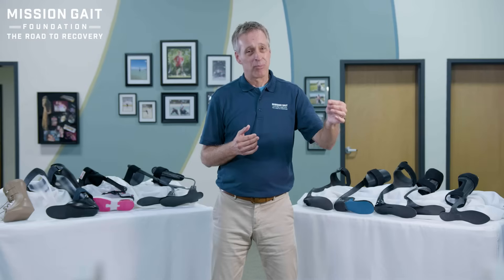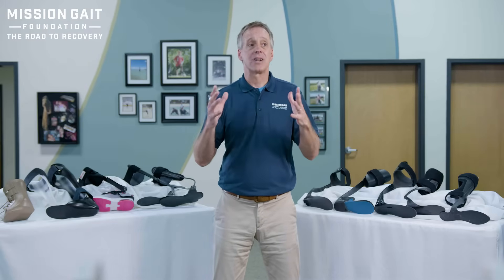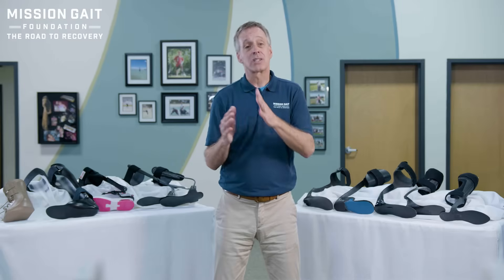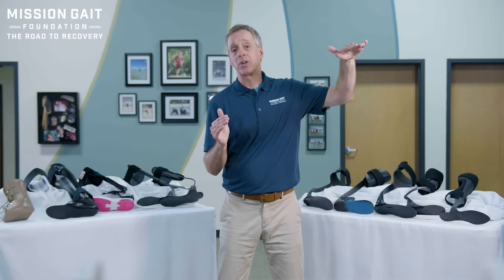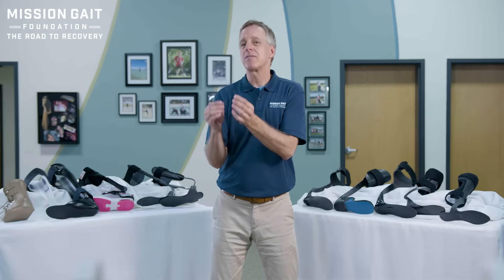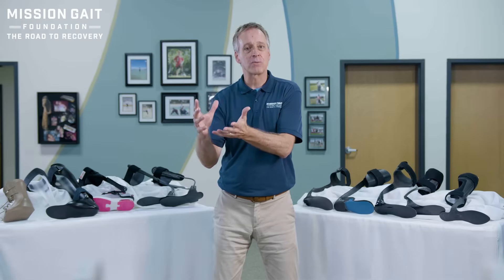What's their history — in other words, the time in pathology? This is really important. Let's say I'm talking to somebody with a hereditary neuropathy, some type of illness that's going to get worse over time — progressive. If I meet them when they're 40 and first diagnosed, I'll pick a very different brace — very light, doing as little for the patient as possible, letting them do as much for themselves — than I would pick later on when they're 60 or 70 years old, where they might need a very different brace.